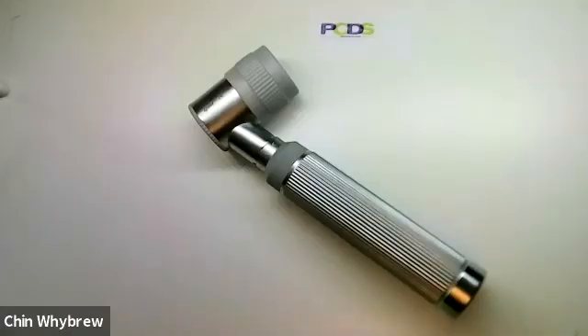Hello everybody, this is the YNR Dermatoscope, which is widely available and very cheap. Today I'm just showing you the equipment. In order to learn how to use it and to interpret what you see, then please do come along to one of our Dermoscopy for Absolute Beginners courses.